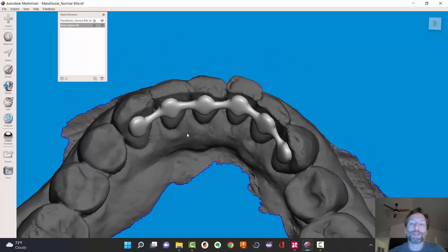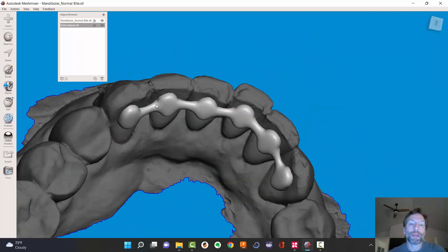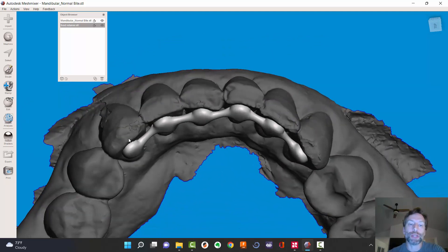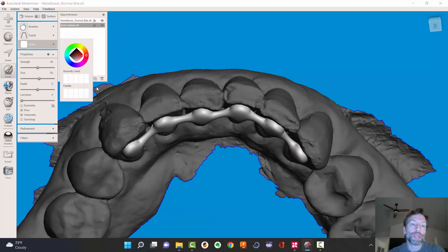It's maybe not going to be the conventional way you might think — maybe you already know what I'm going to do. First of all, this model is pretty crappy, I apologize for that. So I'm going to smooth up a couple of areas, because ideally you wouldn't have this raggedy data here. I'm going to use the sculpt tool, use a smooth brush and come over here, and make it way smaller.